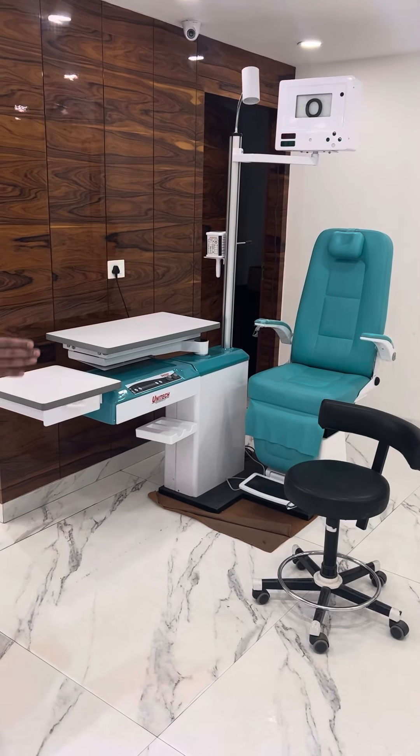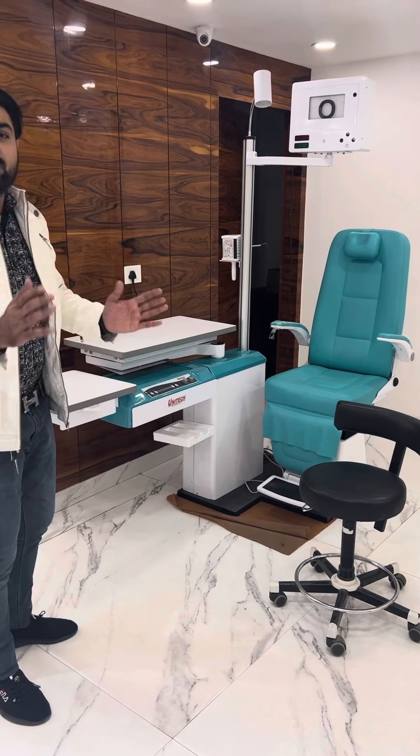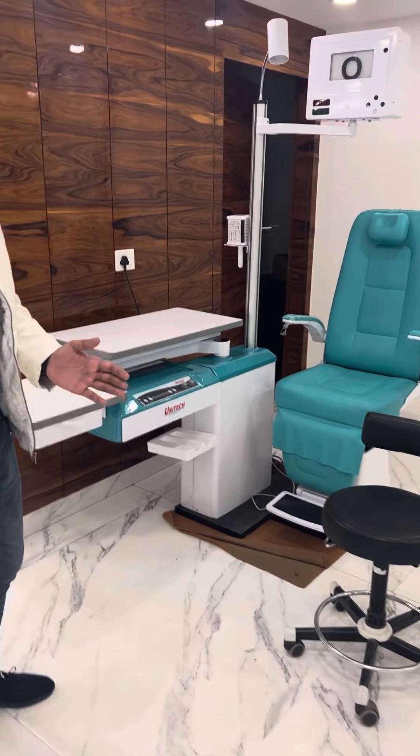The unit will not be the same as a same-to-same unit, which is cheap quality, which means you can't use it long term.